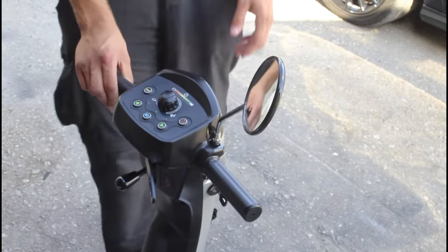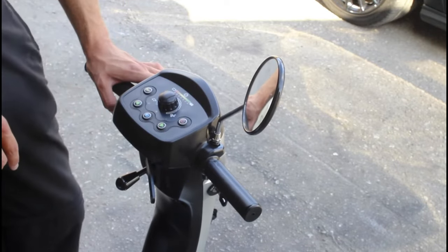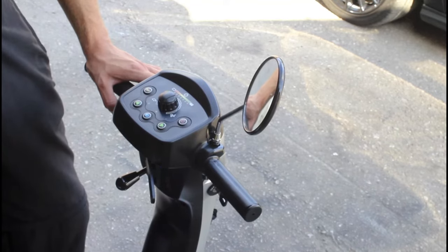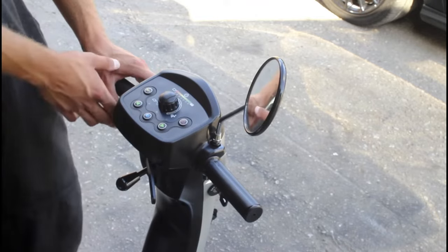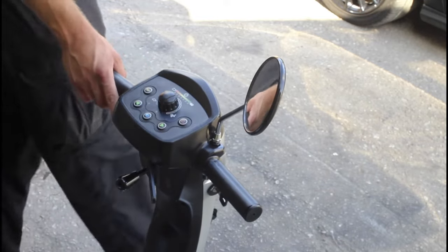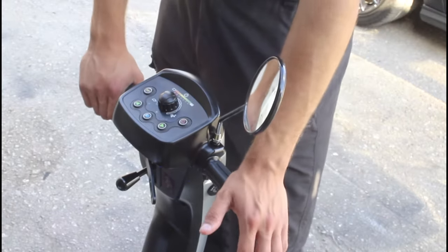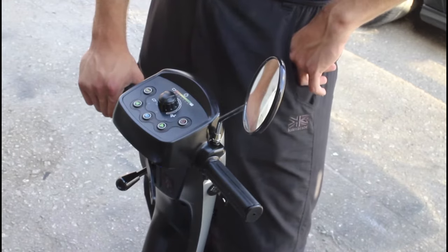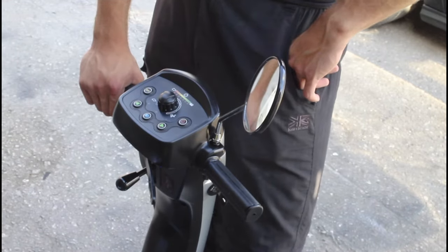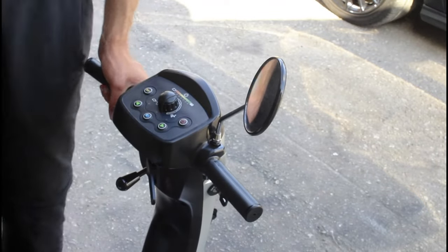As I was saying, the Leo doesn't have the best mile range and it's a four mile an hour — not the best — but it's the kind of scooter you'd use if you're on holiday and just want to go on a two, three, or four mile ride down to the town. We've actually gone back up a bar, so that drop was just from excessive use — turning the light off, these are holding well.